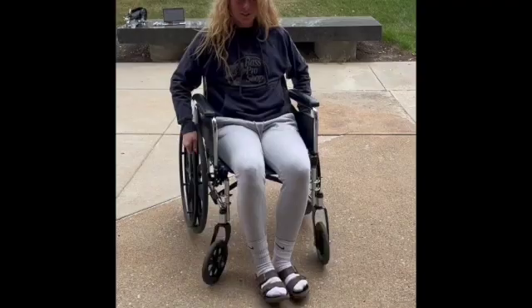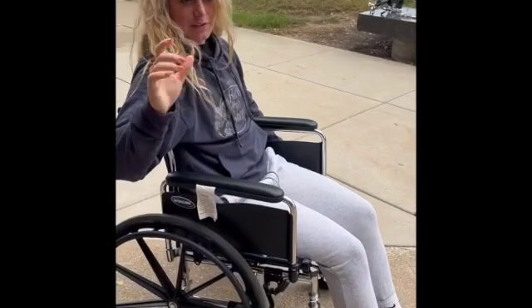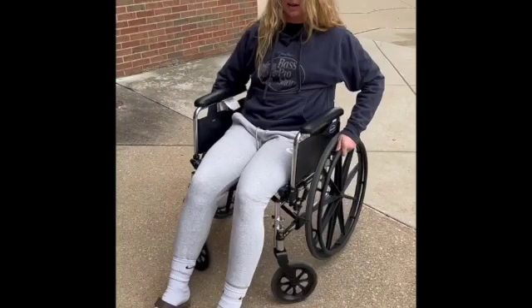If you're ever in a tight space and need to turn, Kaelin's going to show you how. To do a tight turn, just go in opposite directions with the wheels — feet up — so you pull one wheel back towards you and push forward with the other, kind of like you're turning the wheel of fortune.